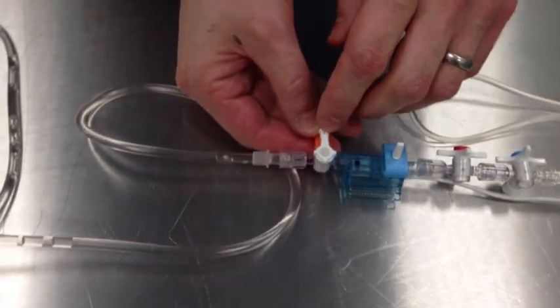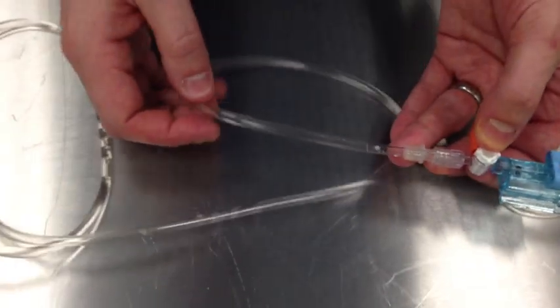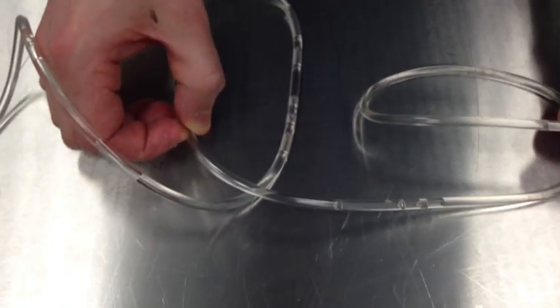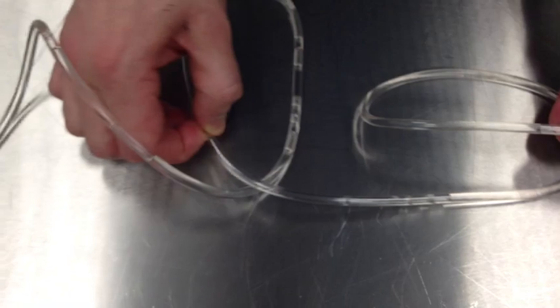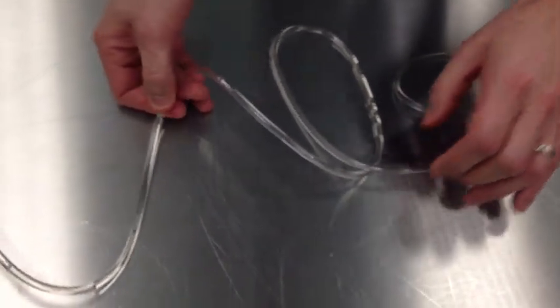The transducer is off to air and open to patient, which is the correct indicator for that three-way tap. However, there are multiple bubbles following it down to the patient end, which would cause inaccuracies with the reading. The tubing is also the incorrect tubing — it is soft, compliant tubing traditionally used in a blood-giving set or extension set.